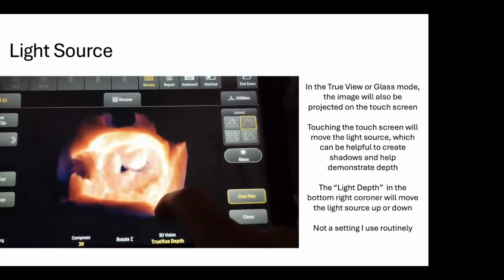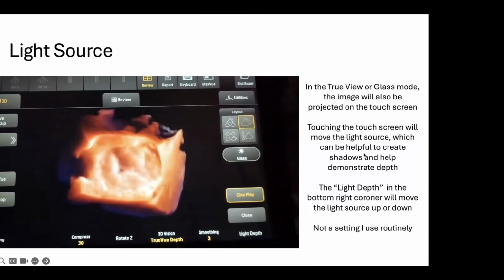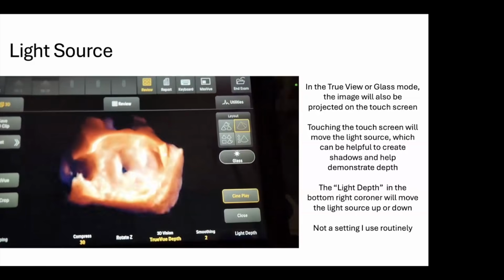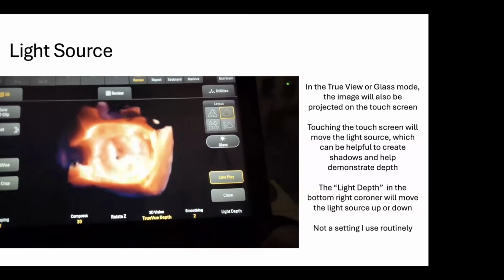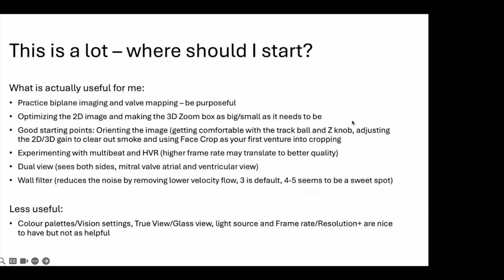And then you can also change the depth. There's this knob over here in the bottom right called a light depth knob. That will move the light source up or down, theoretically, and it can create different shadows, which can help with the perception of 3D images. Again, I don't use this routinely, but just so you're aware that it's there.